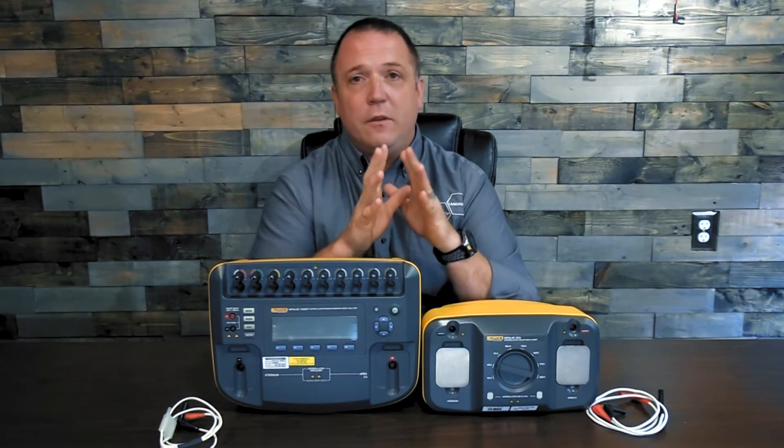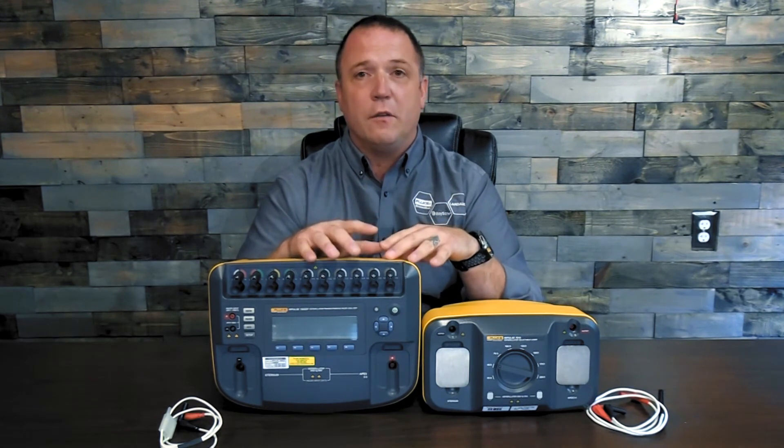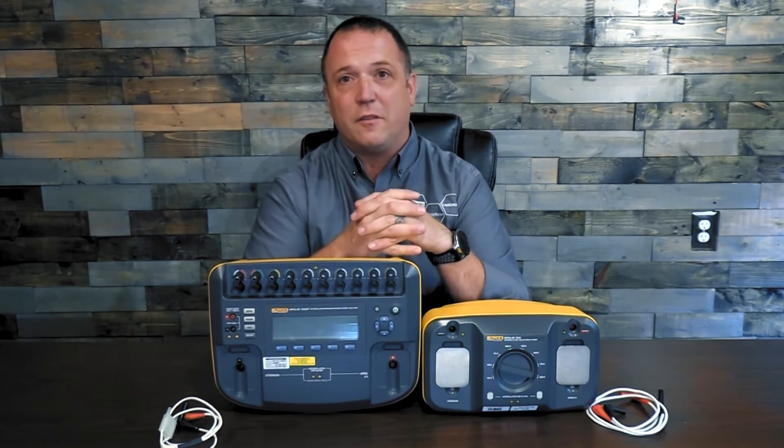So again, what I'm asking you to do is simply go back, pull your service manual, verify with maybe your sales rep or online that you have the most recent, and that your PM tests follow those procedures. You might be surprised at what you find in that service manual — including that you need to do a transthoracic impedance test.